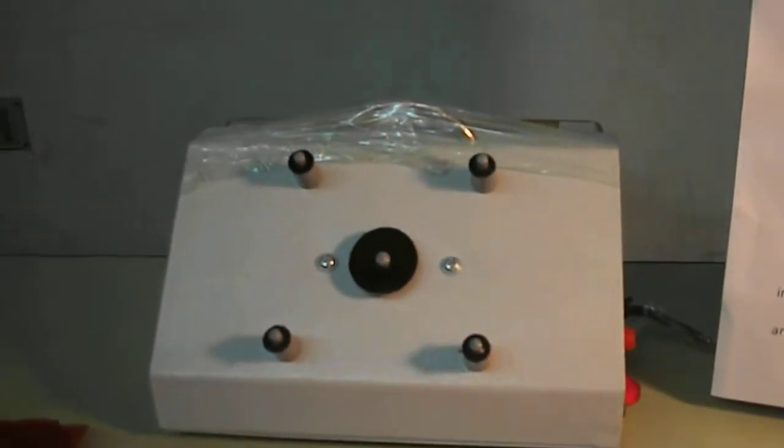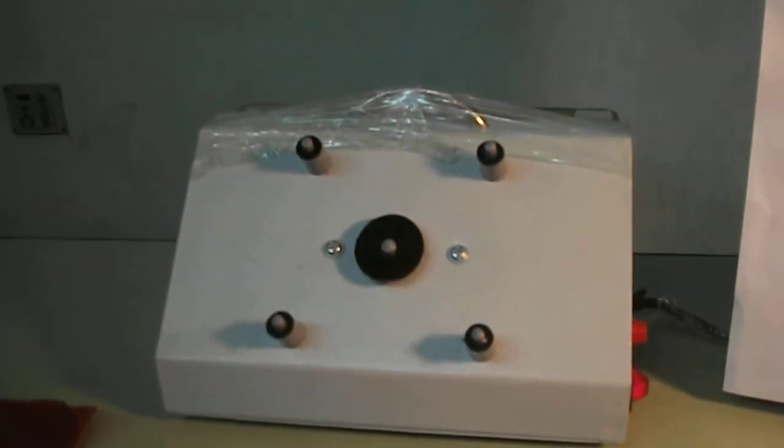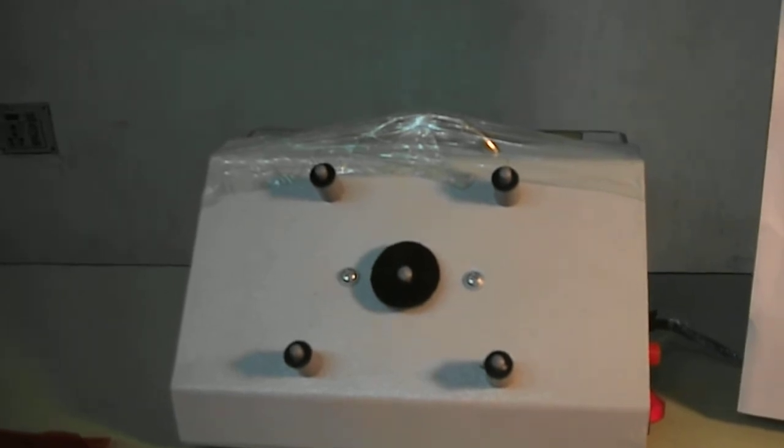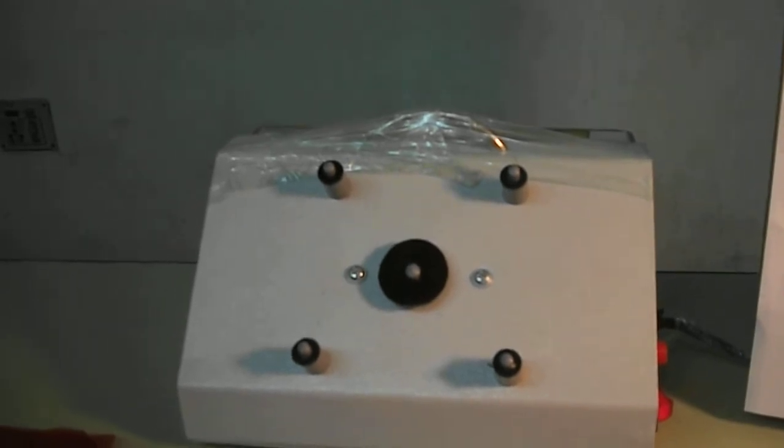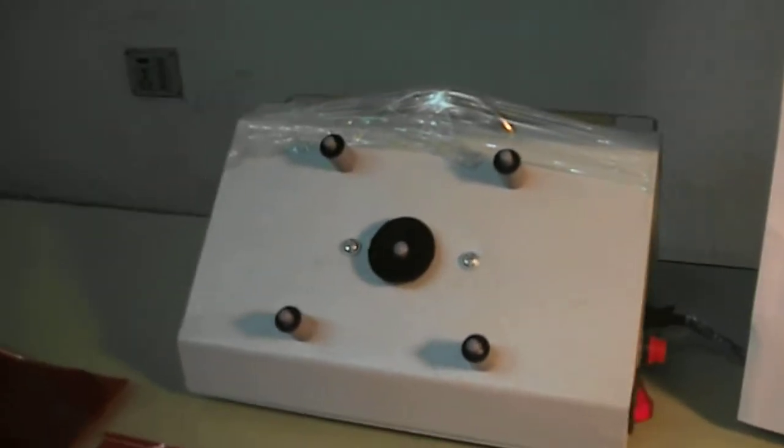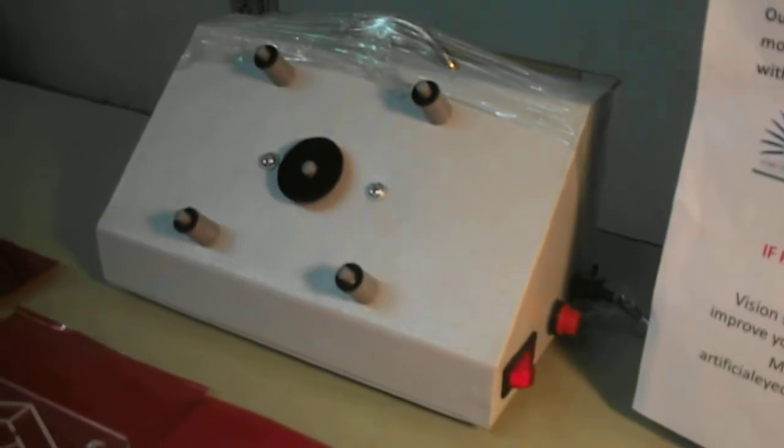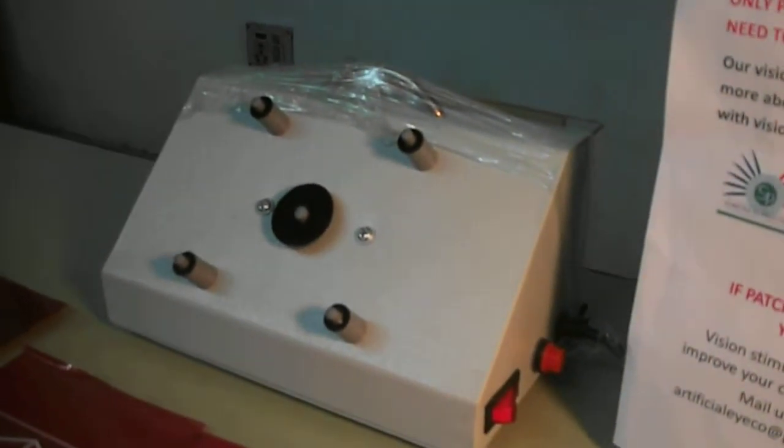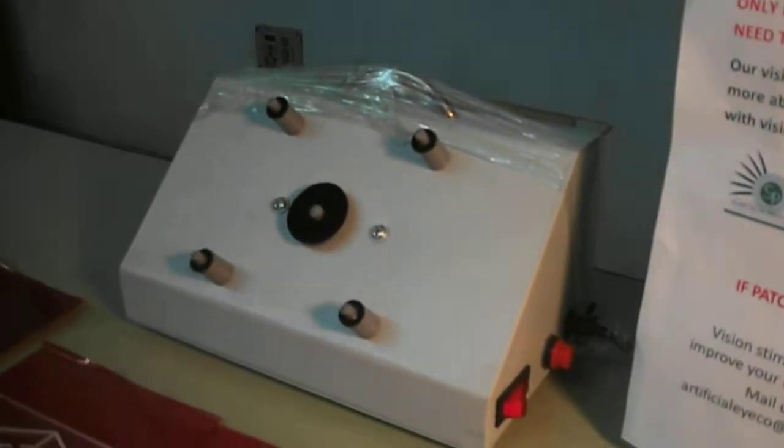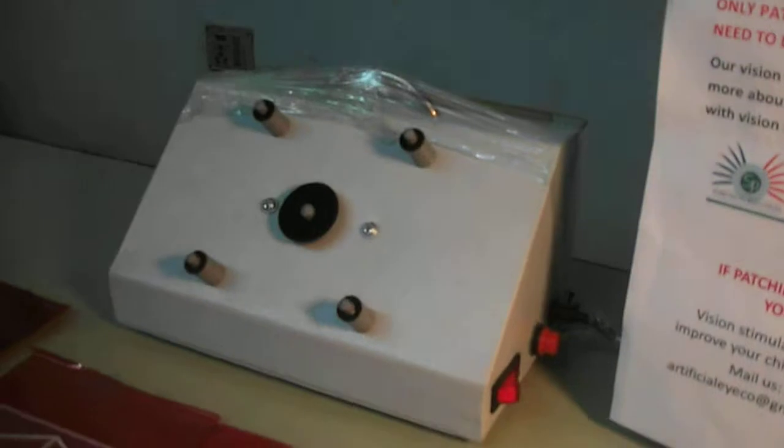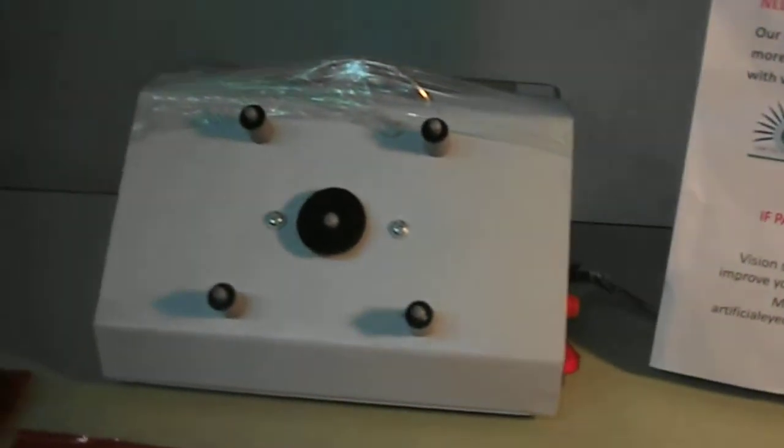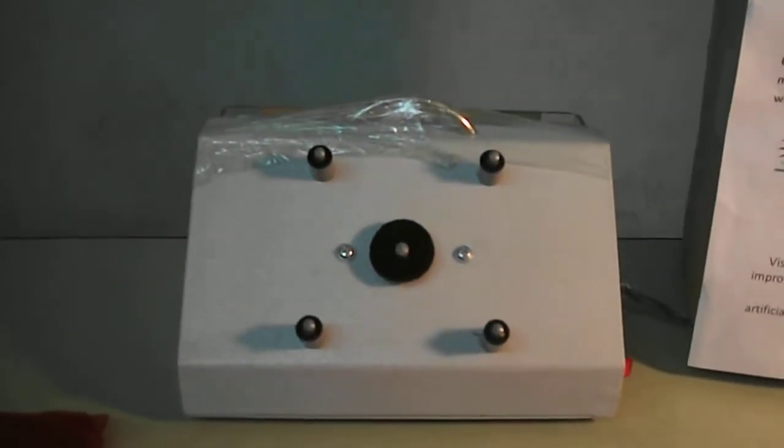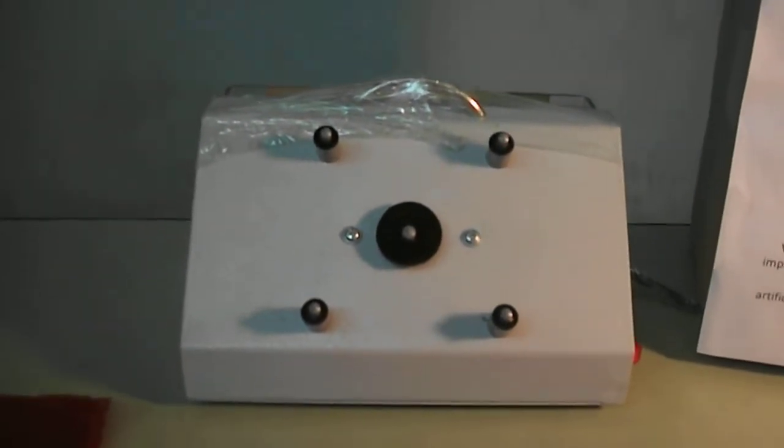It is operated with electricity. There is a motor which runs at 2 rpm. Now you can see there is a switch. Once we are going to start this machine, we have to put on that switch, and we will understand about the other components of this machine.